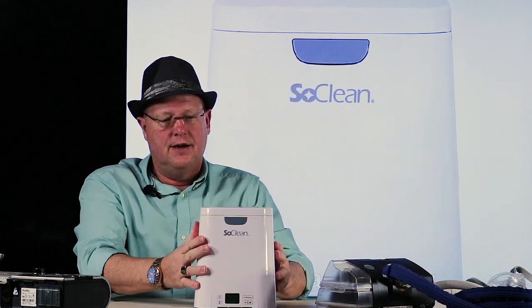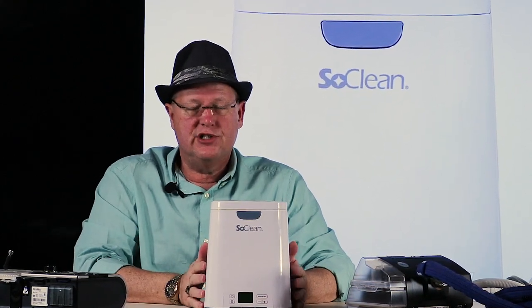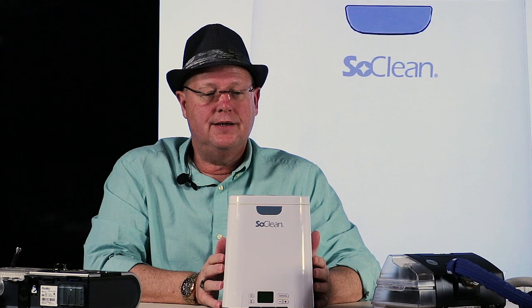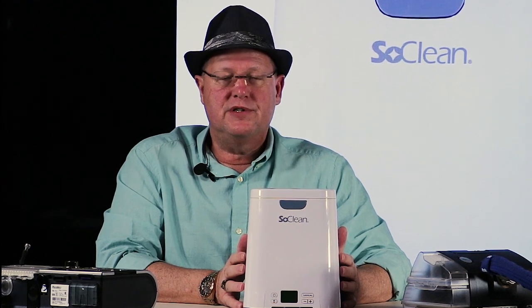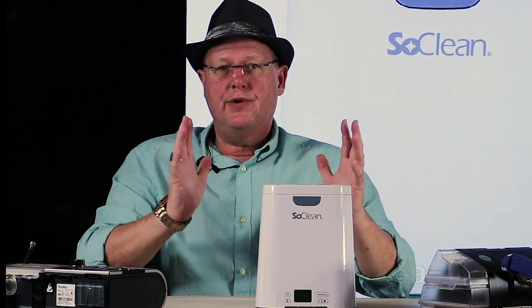I'm going to go through the basics of the unit — they have good videos so I won't spend a lot of time — and share some opinions with you. First of all, I have no medical background and I'm not being paid for this. This is just my opinion on a product. The reviews out there were very polarized, so I'm hoping this review will help you make a decision.